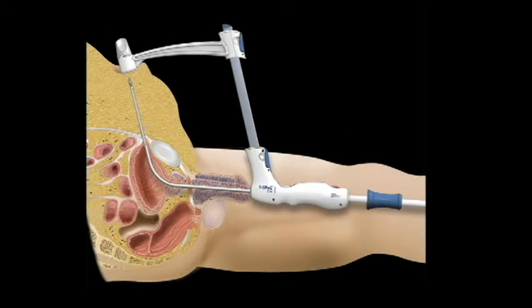If the capture housing indicates a surgical tract more proximal than desired, appearing superior to the peritoneal cavity, take corrective action. To ensure proper surgical tract placement on patients with large abdomens, keep the rear handle within five degrees of the coronal axis. Do not put pressure on the sound tip residing inside the bladder or apply downward force on the rear handle, as this may result in deflection of the alignment arm causing the blade to miss the capture housing.